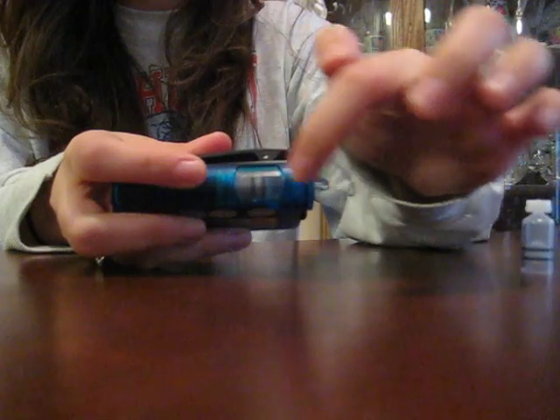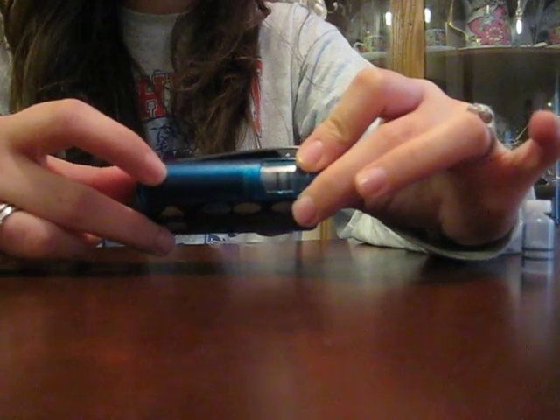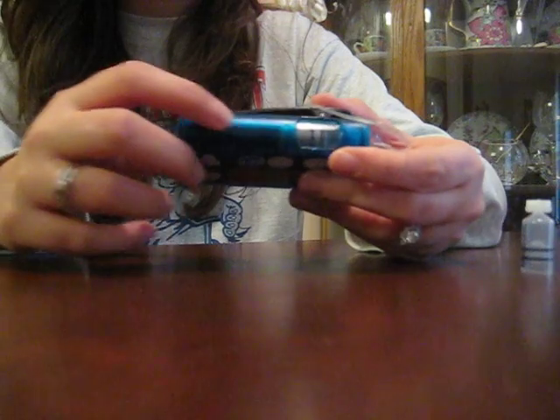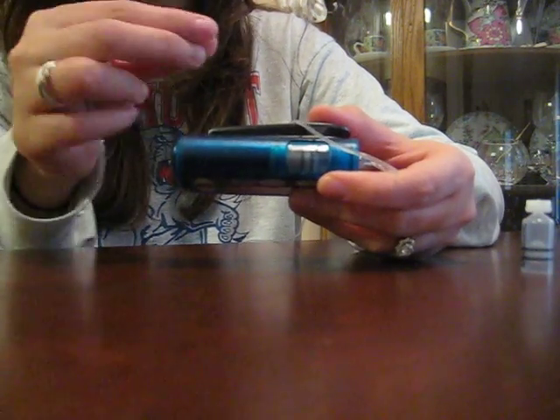This goes right here — you can see my vial in there right now, it's about halfway done. Right here there is a screw that turns itself, and as it turns, this gets pushed up and more and more insulin gets pushed into your tube and through your body. The screw is very exact in how much it puts out every time.